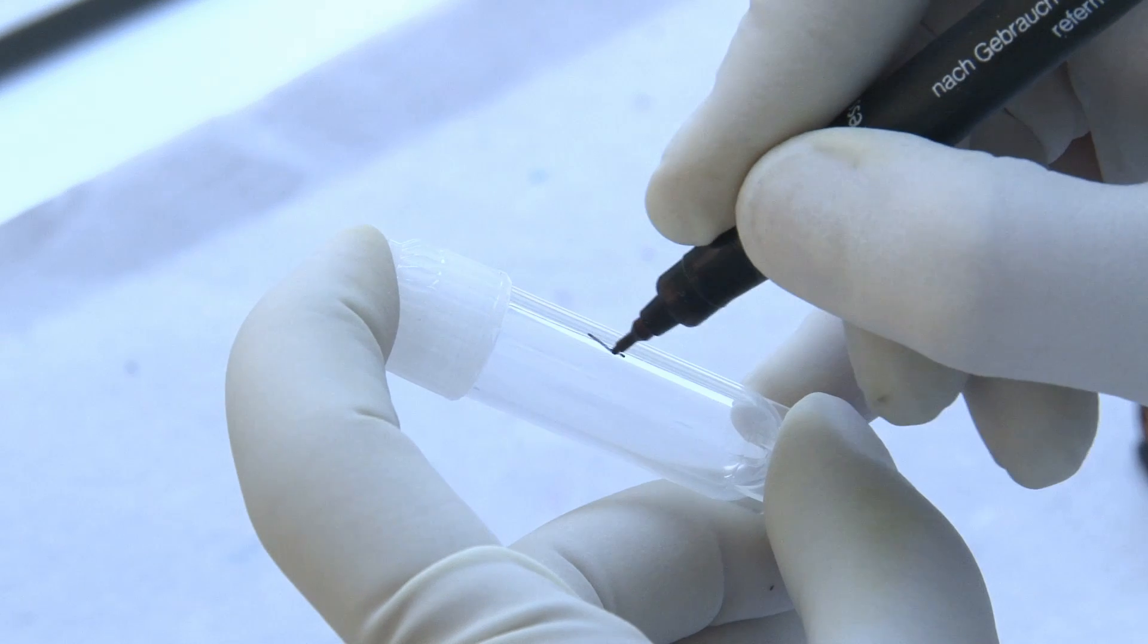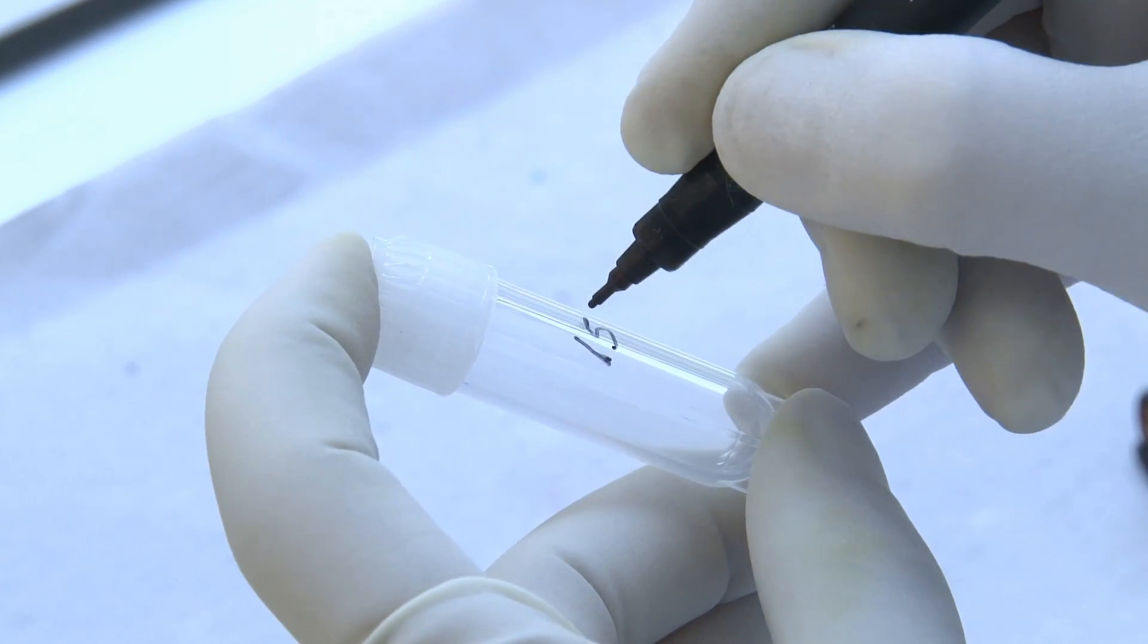Bring all the reagents to room temperature. Take a tube and label it with ID.